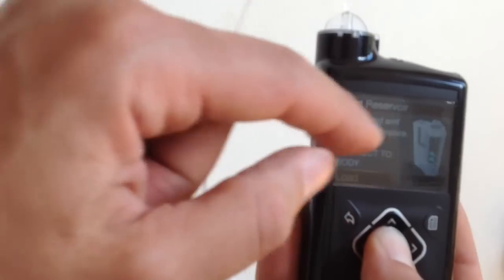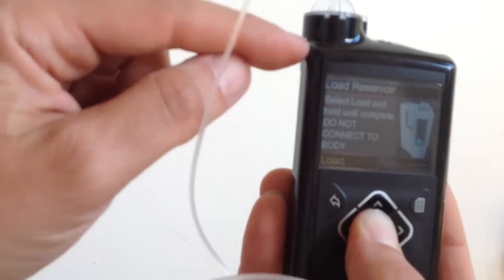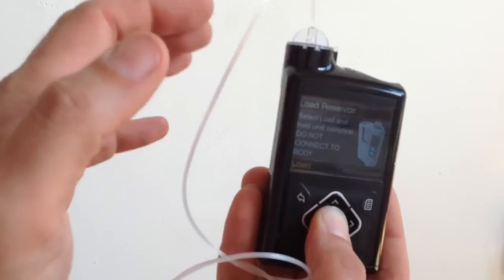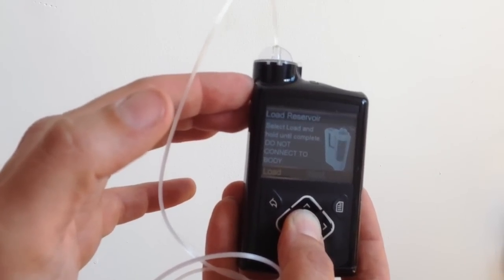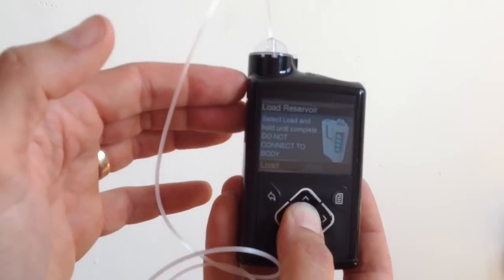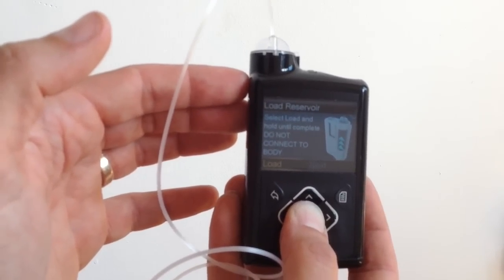Now I'm waiting. You can see the little graphic going. I'm waiting for it to start hitting the bottom of the plunger. And as it does, I'm just going to tap. Tap the pump. Wait, wait, wait, wait, wait.